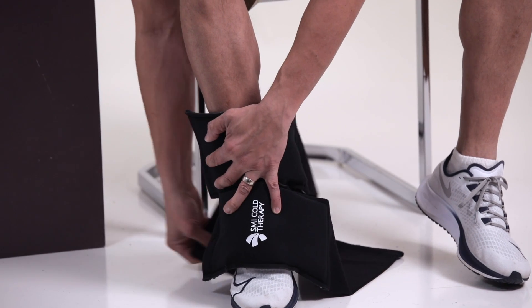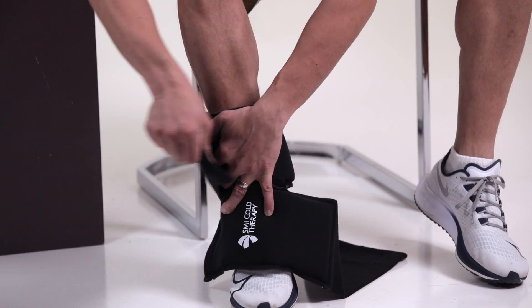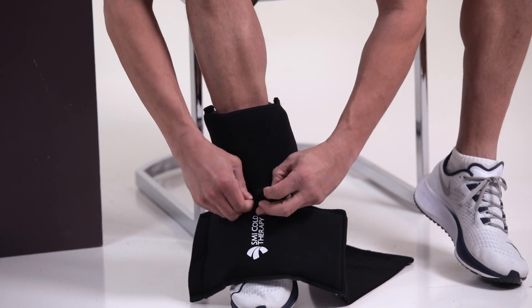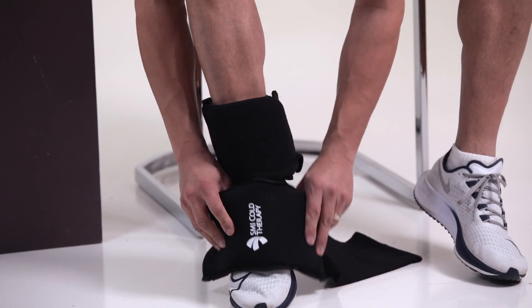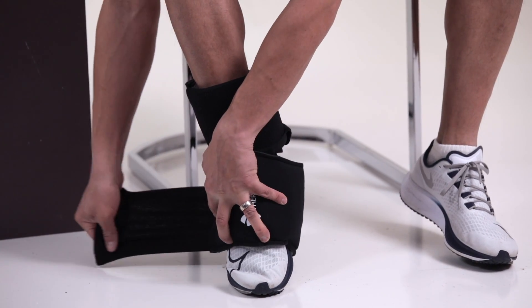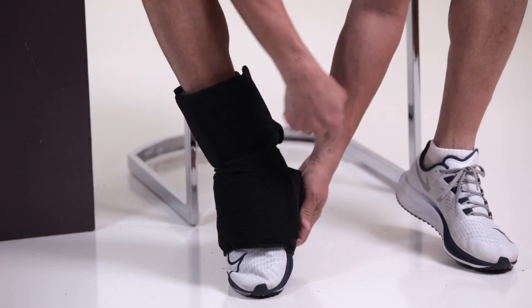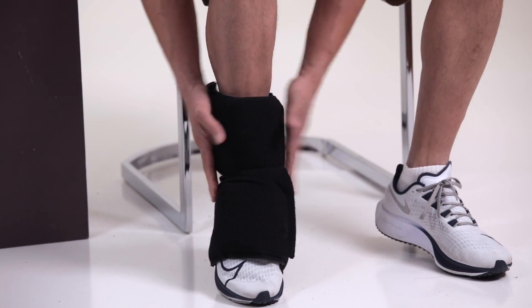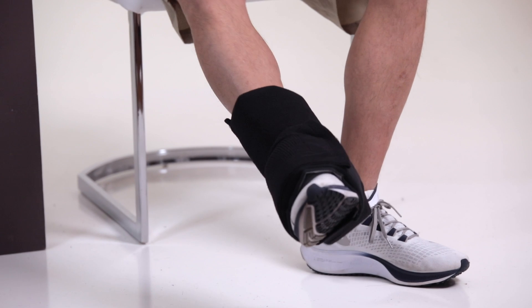So we're going to fold that little strap in and get these around nice and snug. If you're wearing a post-op boot, this is where the compression straps come in handy as it's going to effectively push the cold through. And as I'm wearing shoes, we can feel it going through.